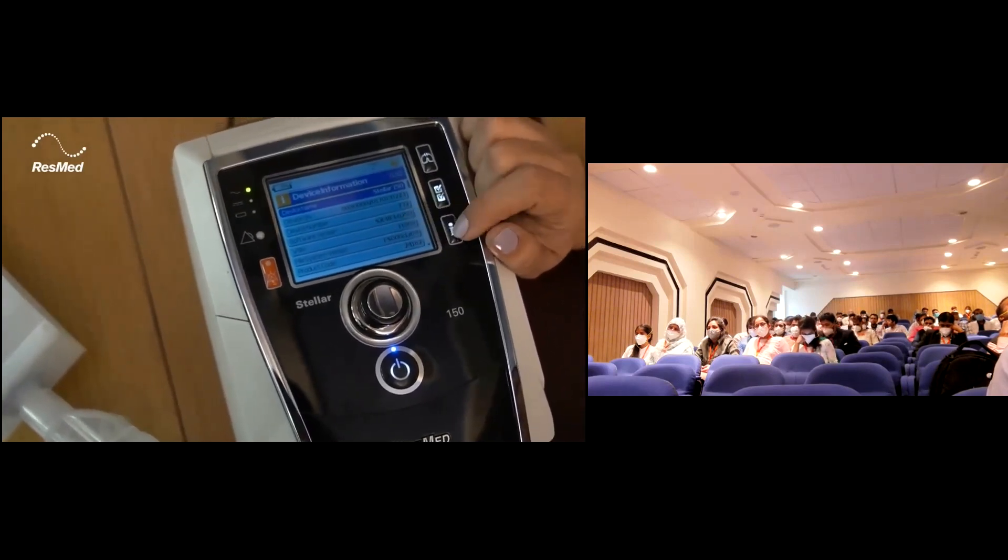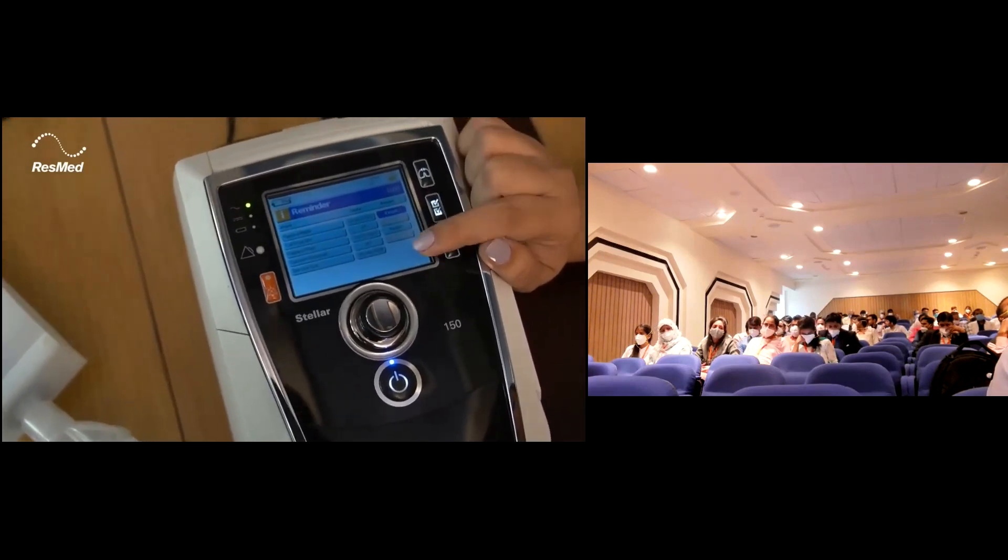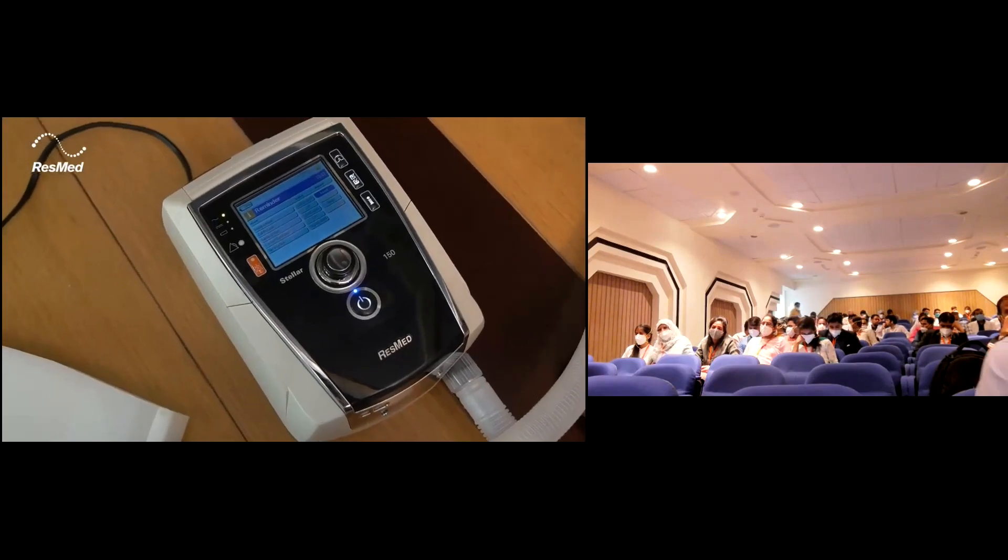In the last page, you can see the device information and any reminder that you may need can be set in the last page. That was about the Stellar demo. Thank you so much for watching.